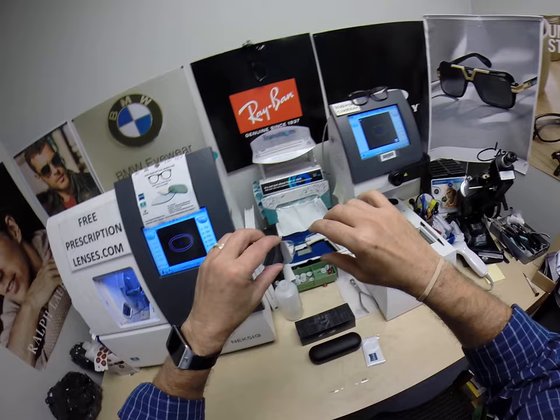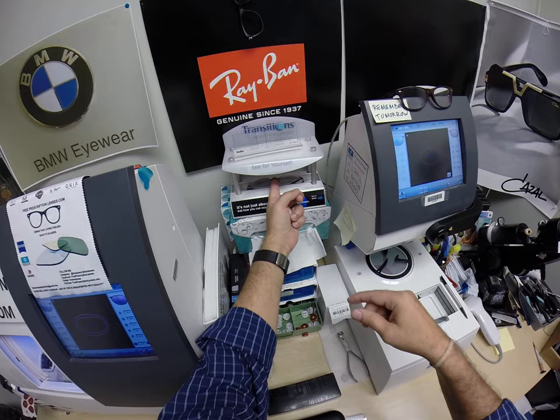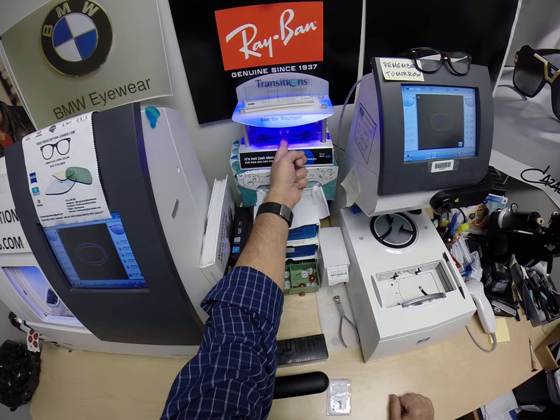I'm going to go ahead and expose these to a strong burst of ultraviolet light. Now as you can see, it takes about 30 to 45 seconds for the lenses to turn dark — a little bit longer when you come back inside, about 45 seconds to a minute, minute fifteen.